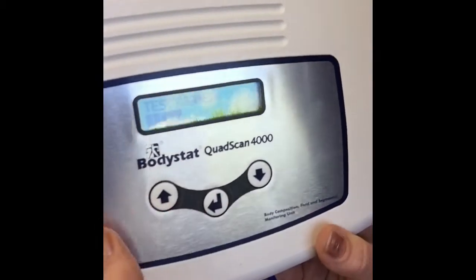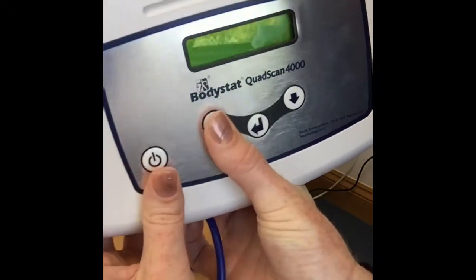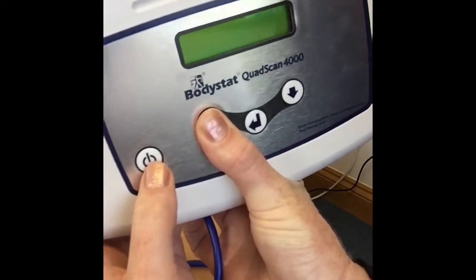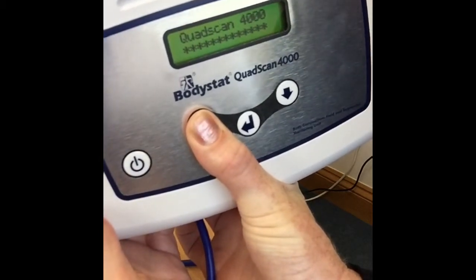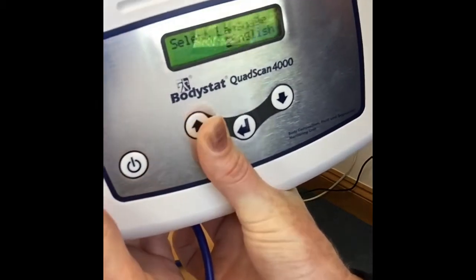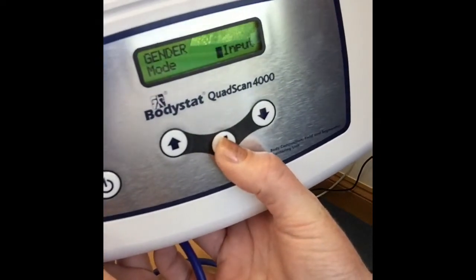If you do need to change anything, or if you've clicked past the save screen by accident, turn the unit off and press the on and up arrow together. Wait for the installation screen to come up again and you can go through and make your amendments. Thank you.